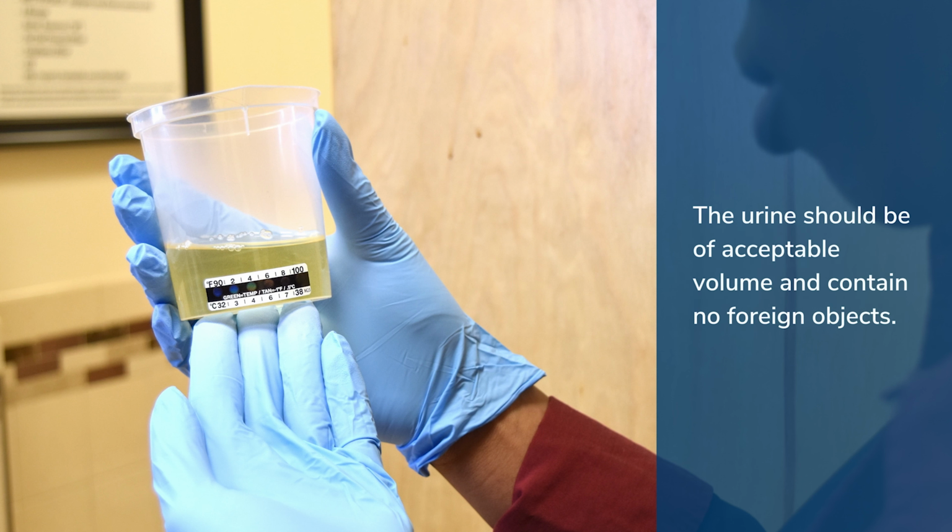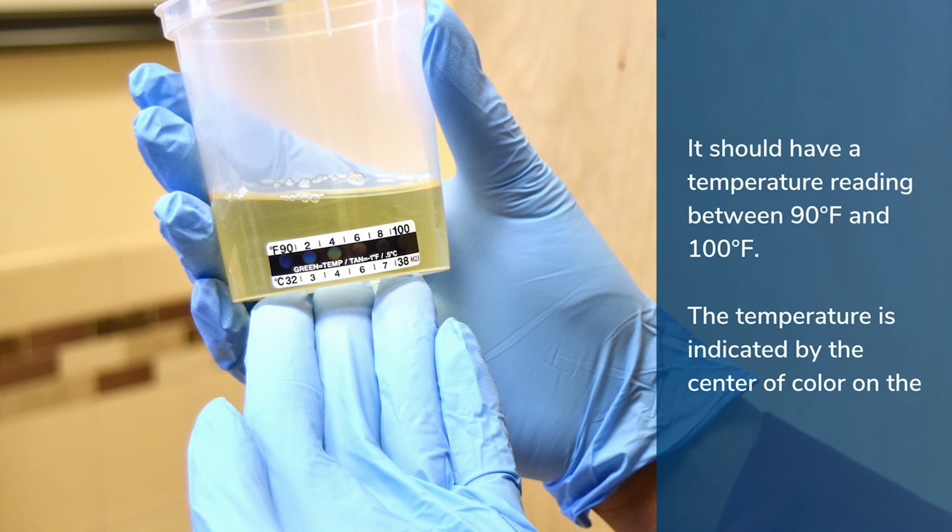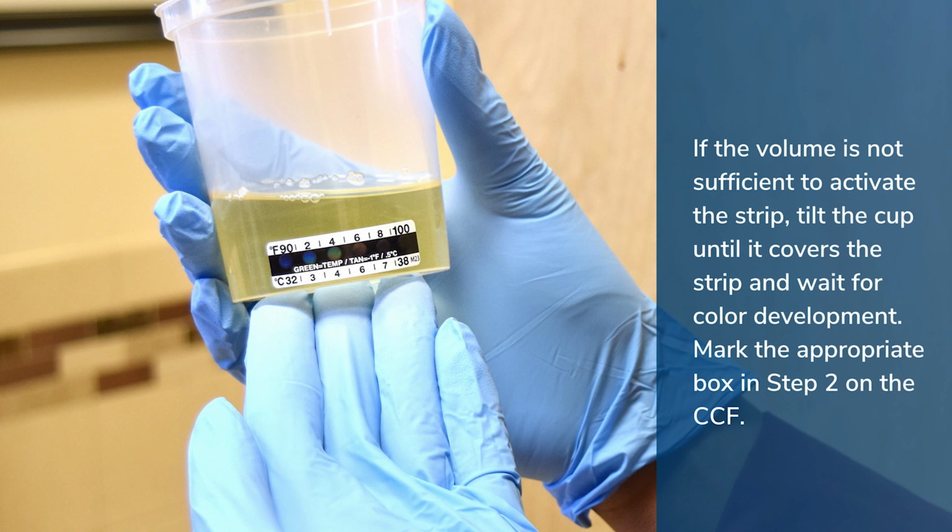The urine should be of an acceptable volume. It should contain no foreign objects. And the sample should have a temperature reading between 90 and 100 degrees Fahrenheit. The temperature is indicated by the center of color on the temperature strip. If the volume is not sufficient to activate the strip, tilt the cup until it covers the strip and wait for color development. Mark the appropriate box in Step 2 on the CCF.